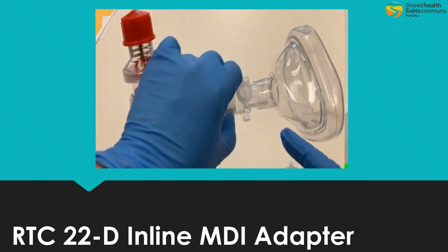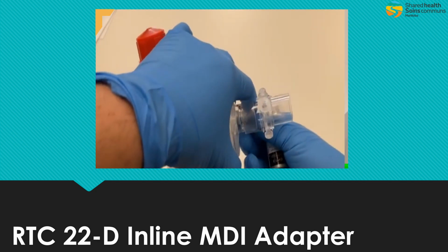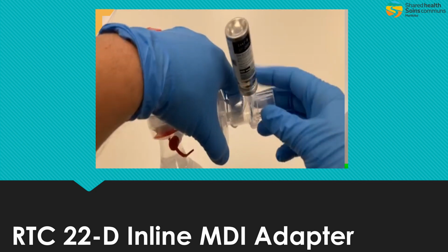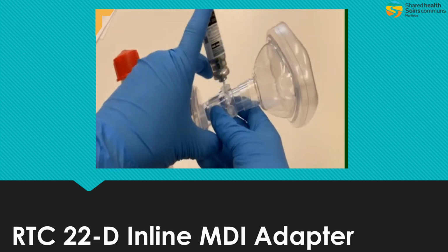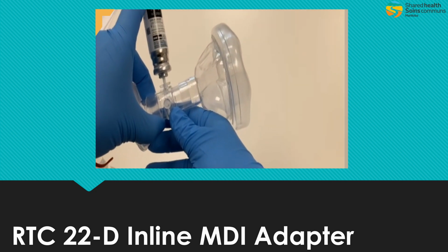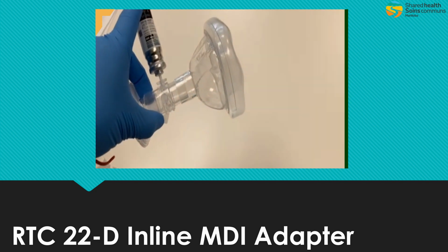Next, we're going to take our BVM and find the rubber cap on there. We're going to remove that rubber cap and insert our canister directly in there, ensuring it's properly seated. At the beginning of every respiration, we're going to push the device down to give medication. As you can see here, it's going to spray out, so one breath per spray. Make sure when you push the canister down, it's directly down. We don't do it at an angle, so that we get full pressurization and a full dose of medication.